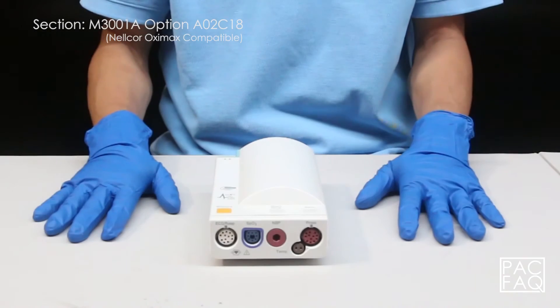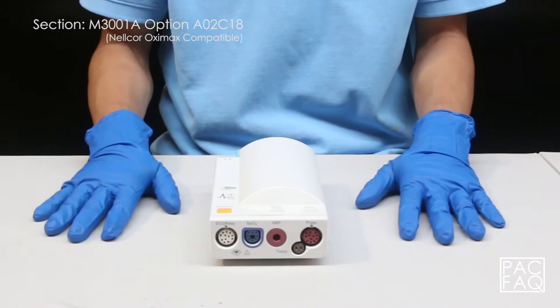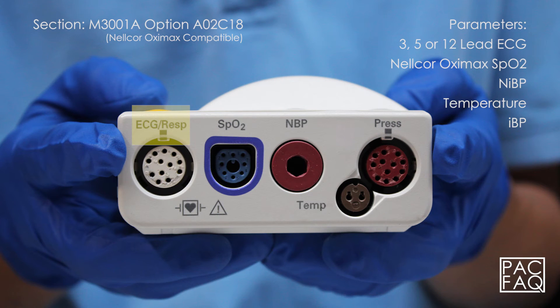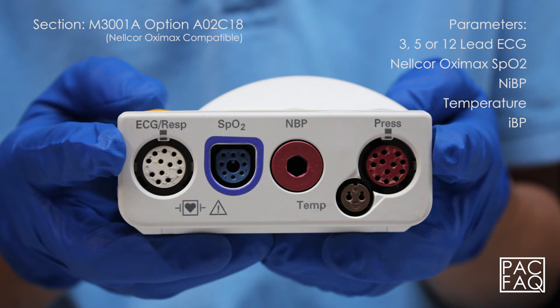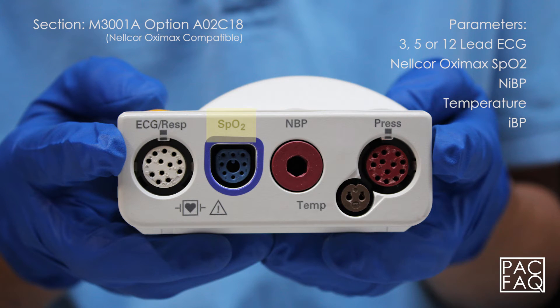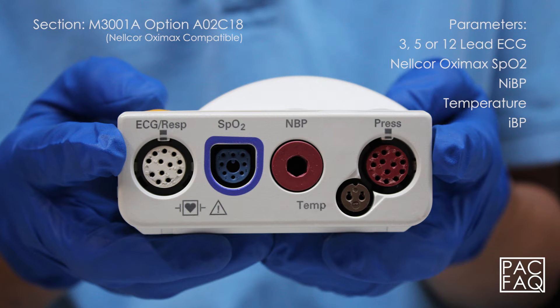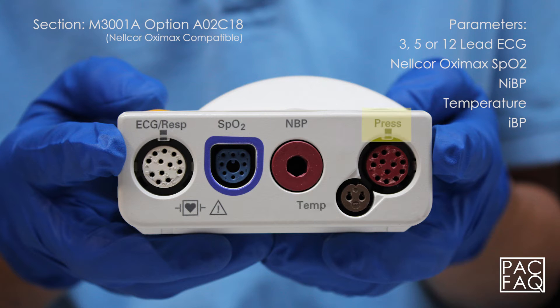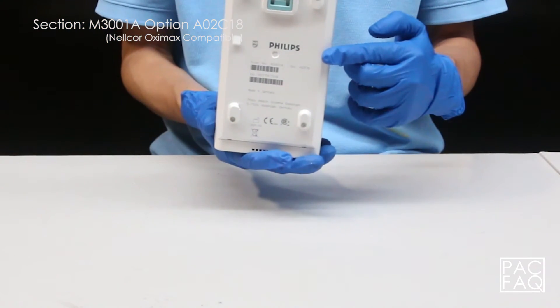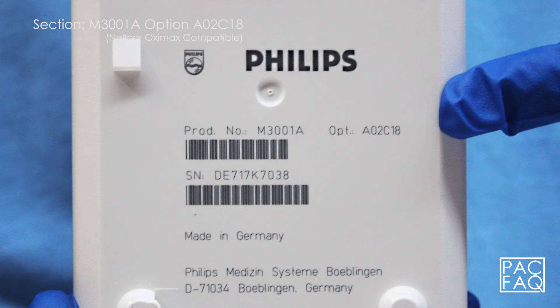Here we have option A02 C18. This unit comes with parameters 3, 5, or 12 lead ECG, Nellcor OxyMax SPO2, non-invasive blood pressure, temperature, and invasive pressure. The product identification and serial numbers are located on the bottom of the unit.